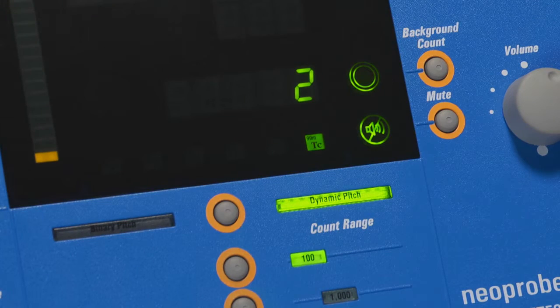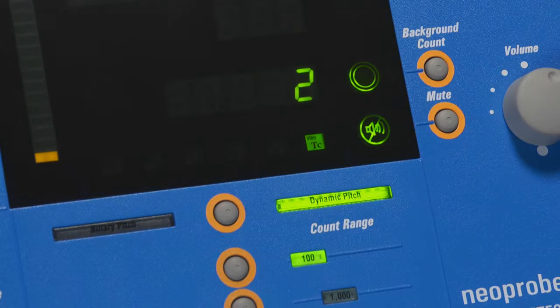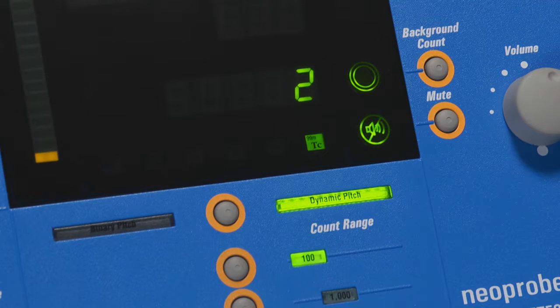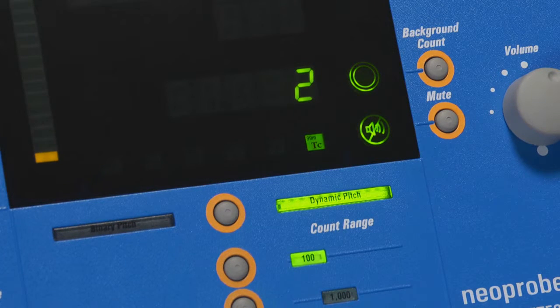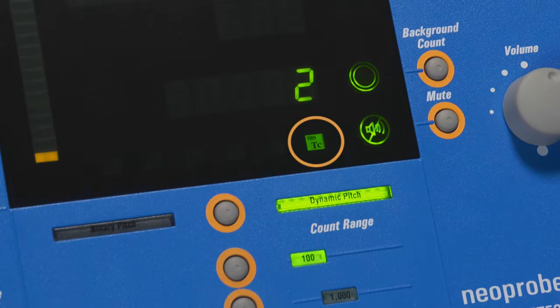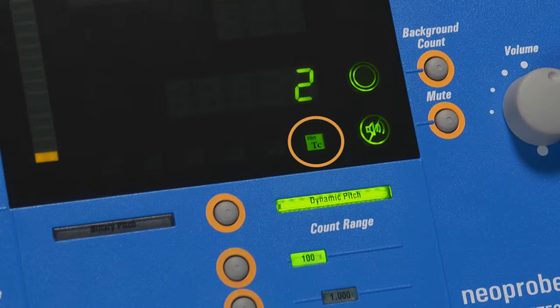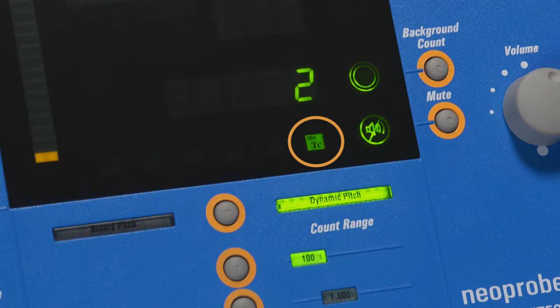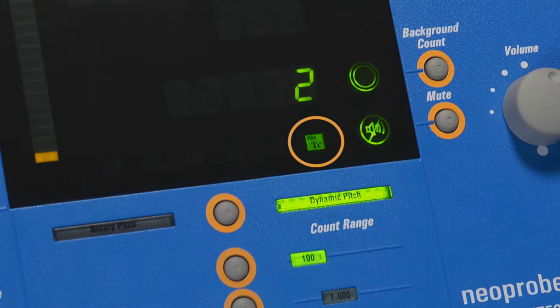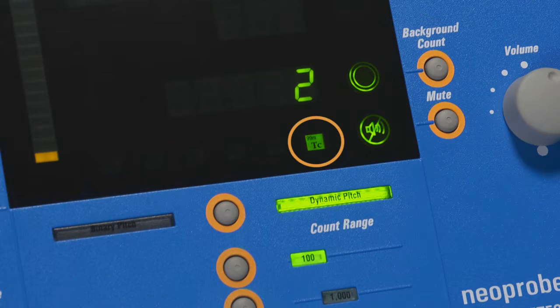The system is set up with predetermined energy detection windows based on the energy levels of the selected isotopes, with the default radionuclide being Tc-99m. The selected radionuclide is displayed on the console along the bottom of the screen.